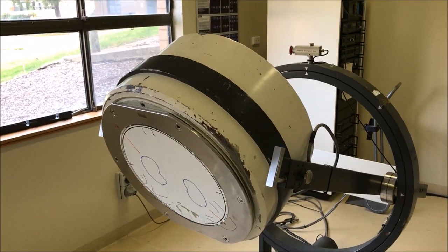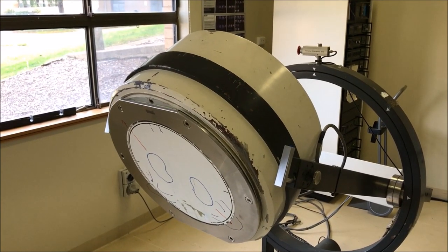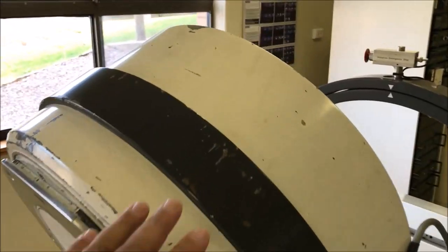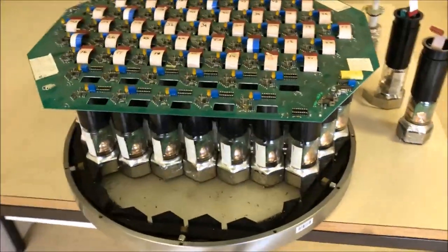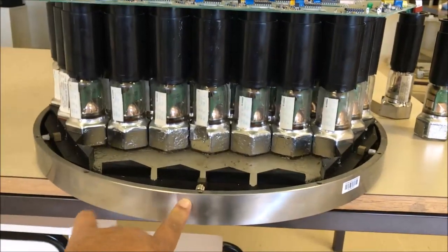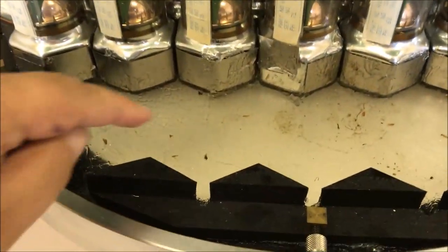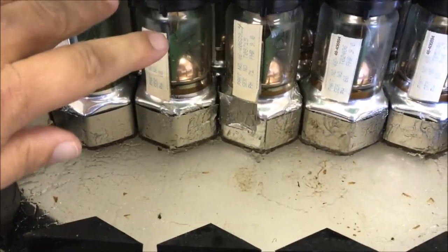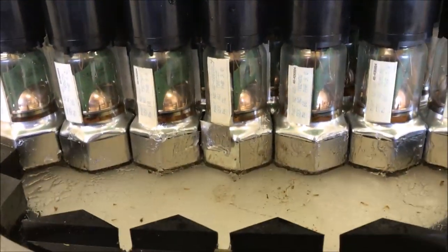What happens after a photon passes through the collimator? Those events that make it through will encounter what's called the crystal. You can't see what's going on inside this detector head because it's got a lead casing around it. Here's one I prepared earlier where I pulled that detector apart — it's the same detector. You can see this ring is where the crystal sits, held in a stainless steel ring. There's a bit of optical coupling gel on it, and it's got a hexagonal array of photomultiplier tubes. Up the top they're coupled to preamplifiers and shaping circuits.